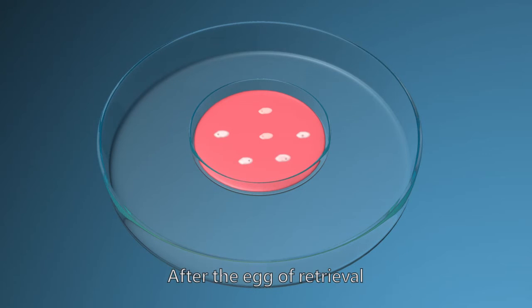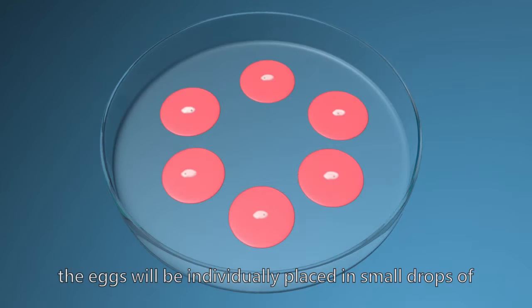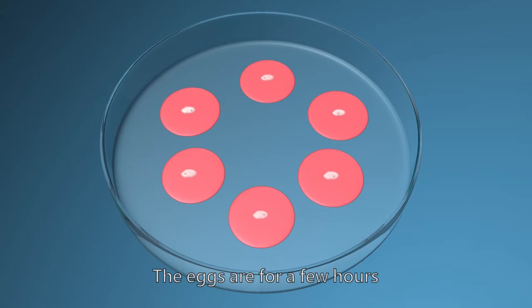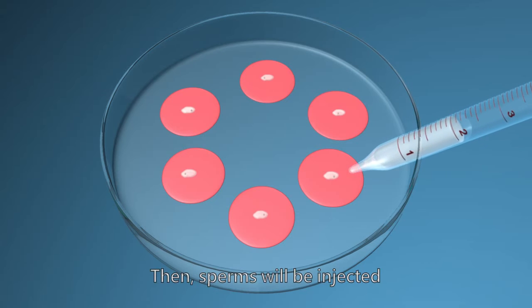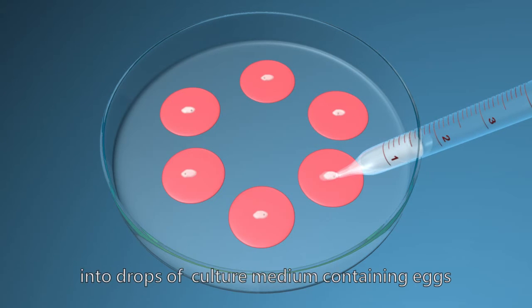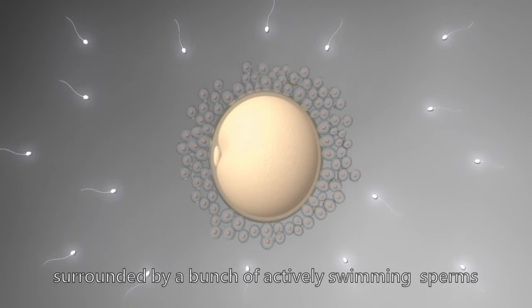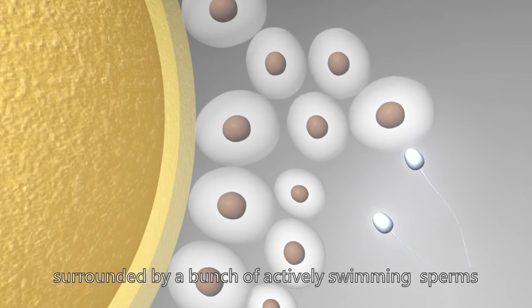After the egg retrieval, eggs will be individually placed in small drops of fresh culture medium in a new culture dish. The eggs are placed for a few hours. Then, sperm will be injected into drops of culture medium containing eggs. Under the microscope, the eggs are surrounded by a bunch of actively swimming sperm.